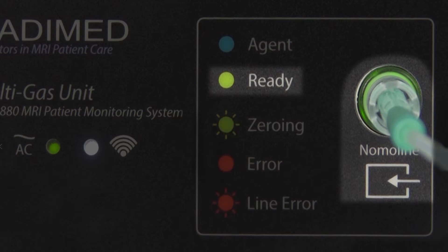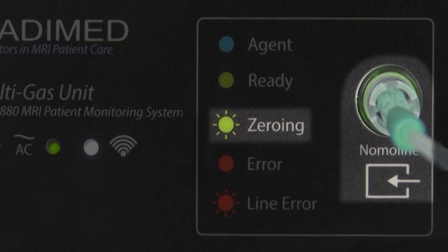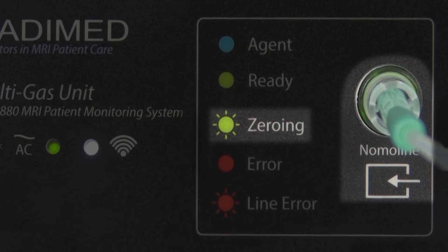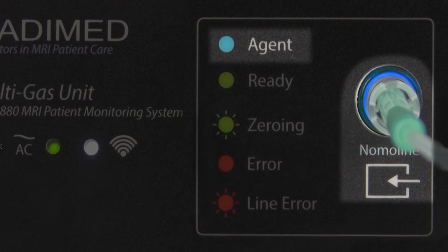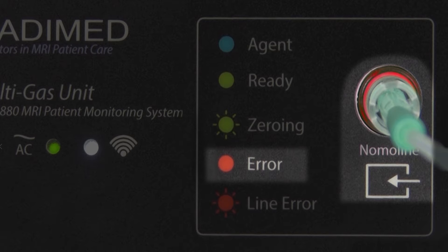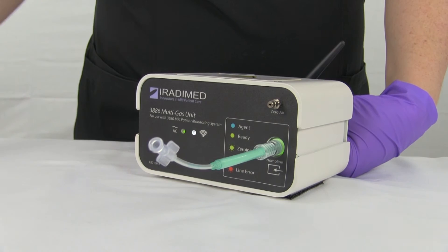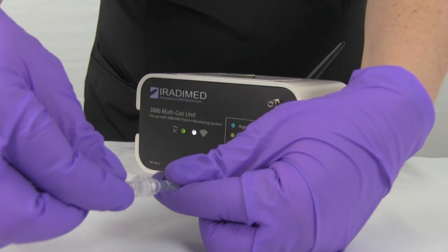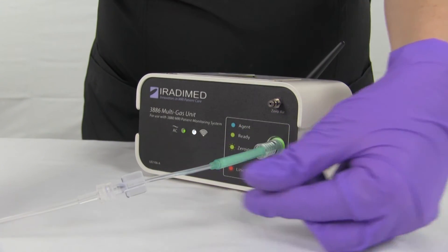A steady green light indicates the NomaLine and multi-gas module is ready for use. A flashing green light indicates the multi-gas module is performing the zero function, which the system will automatically perform. A steady blue light indicates anesthetic agents are being detected. A steady red light indicates there is an error with the multi-gas module, while a red flashing light indicates an error in the NomaLine. Once the NomaLine is connected and the multi-gas module has a steady green light, the user will connect the sample line to the NomaLine by securing the male and female connectors.